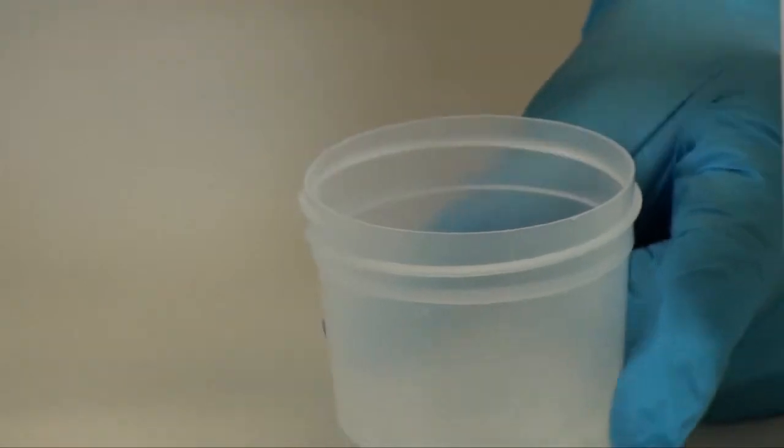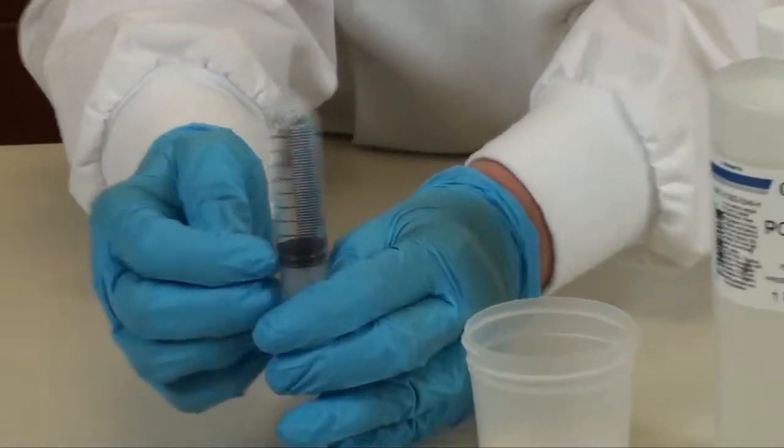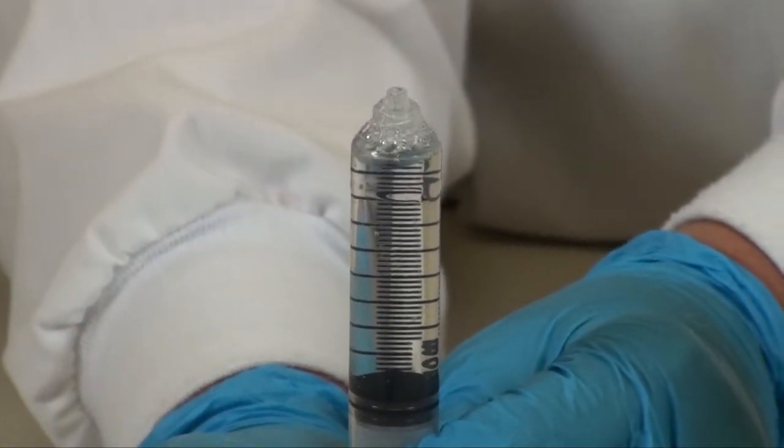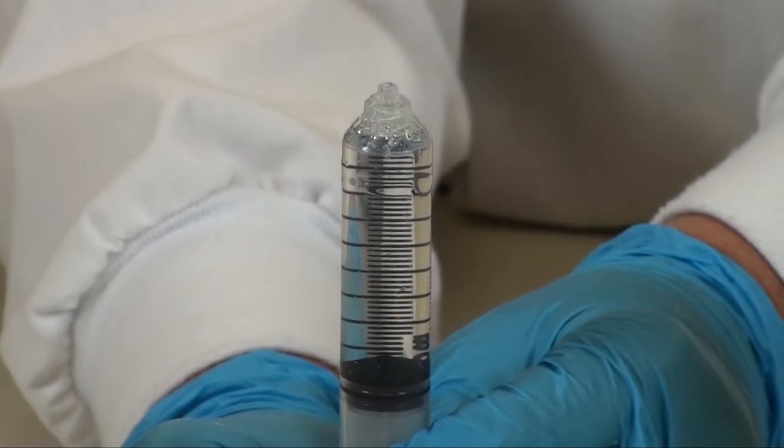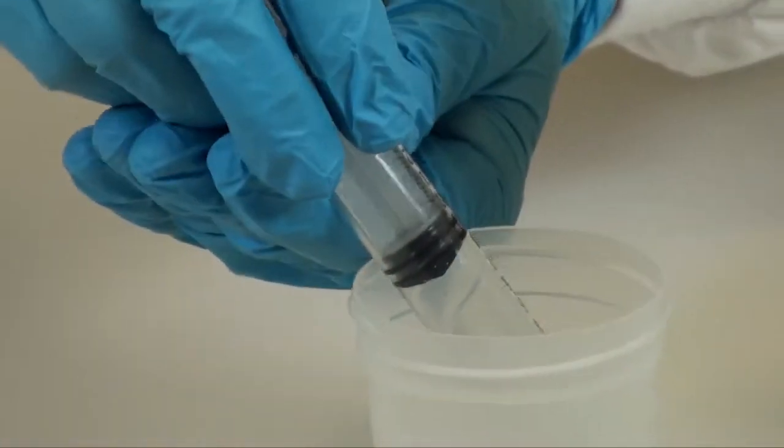You want to be sure you don't have air bubbles in your syringe. So tap any air out of the syringe and expel it and then adjust to a final volume.